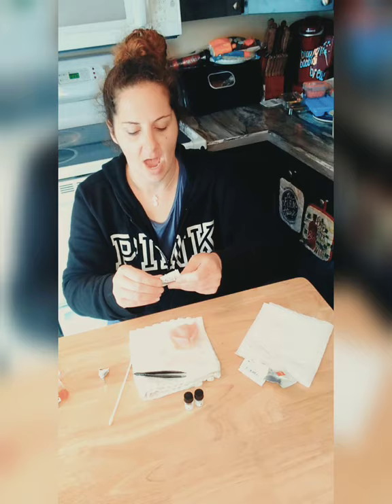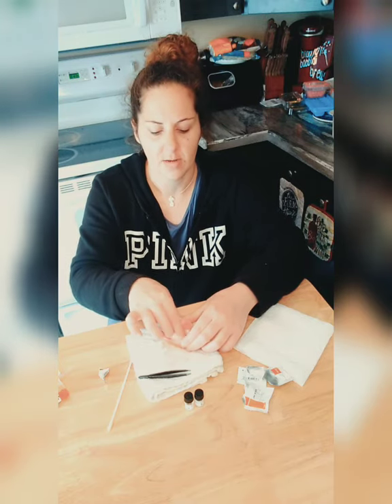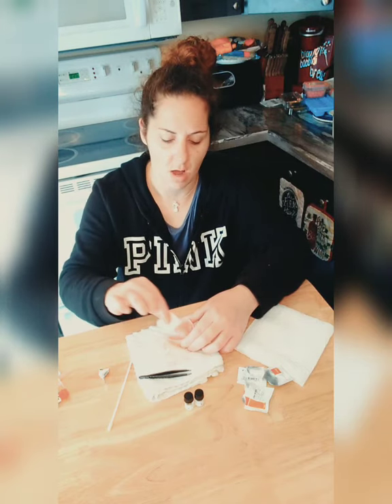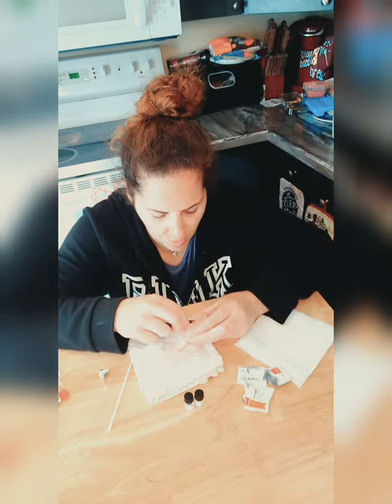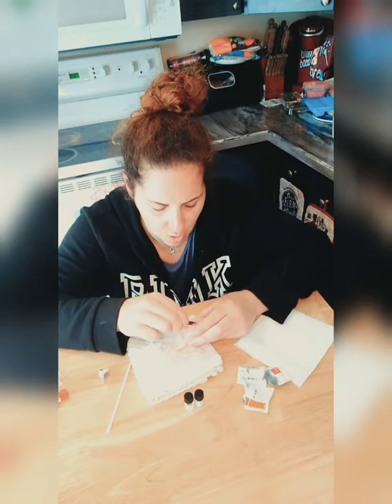I'm also going to do my own adjustment while I'm at it. I don't have a warranty on my denture — everything I do, I do myself. I can get free adjustments from my dentist but it's hard to get in because of COVID. I do my own adjustments using a simple nail file — the old-school emery boards, the brown ones. You can even use sandpaper; it's the same thing. I don't use a Dremel because too much pressure, force, or vibration can crack and break the denture, and a lot of us don't have money to just keep replacing dentures.